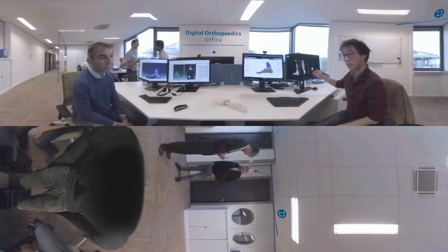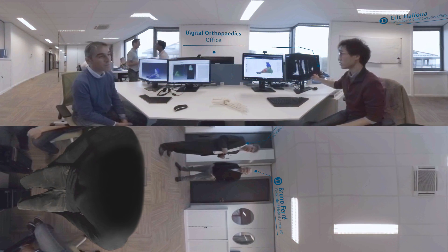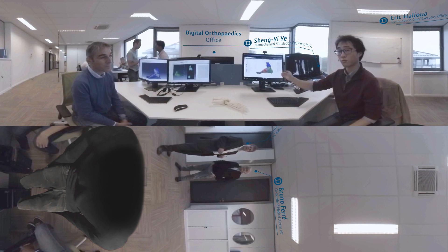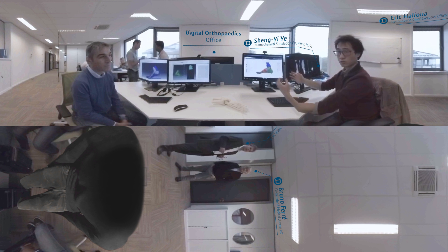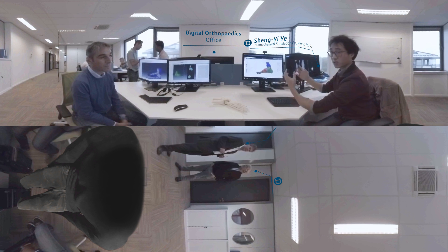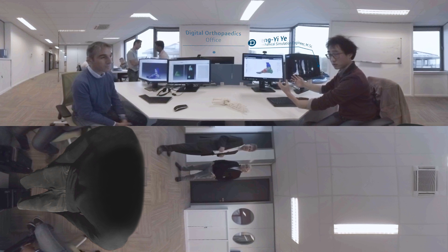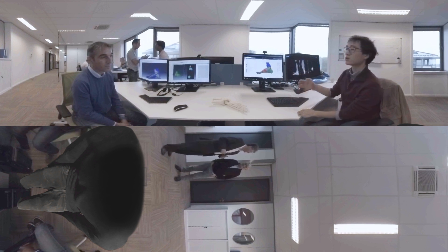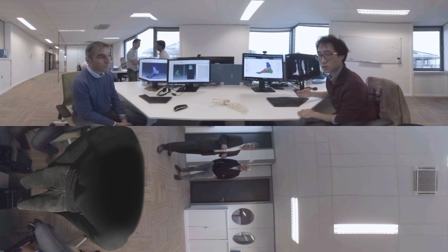We just received medical imaging for our patient, and using CATIA on the 3DX platform we are able to reconstruct the 3D model of that specific patient, which can then be used for surgical simulation.